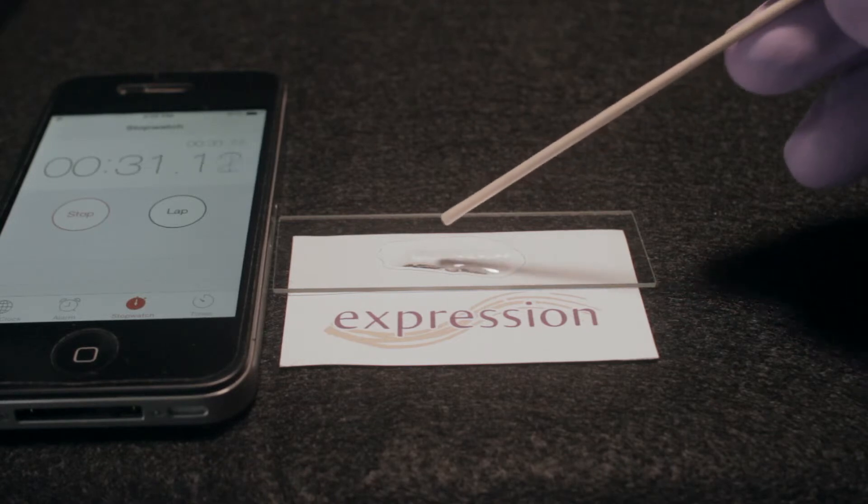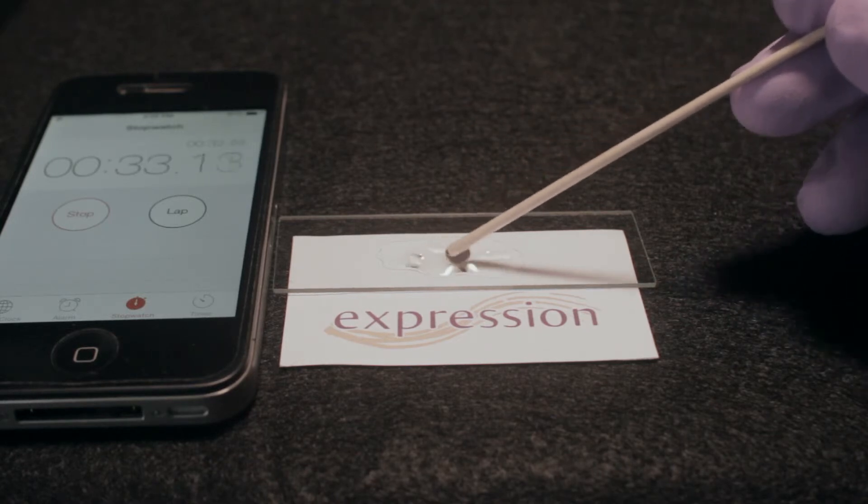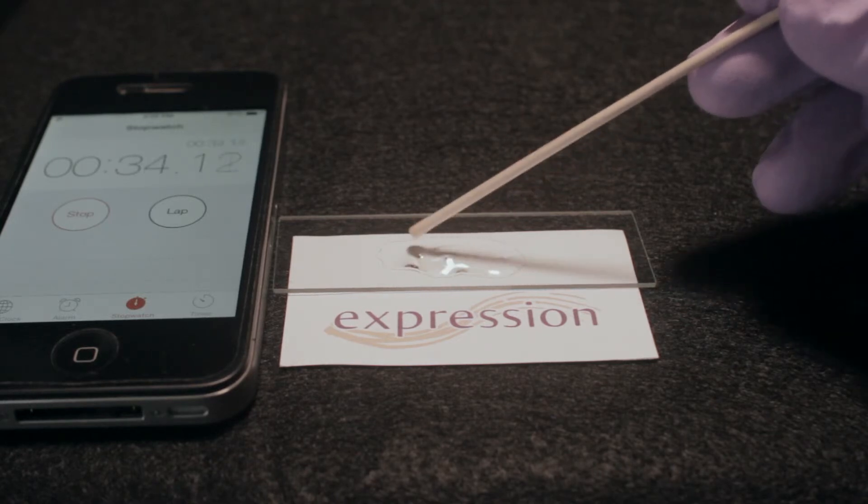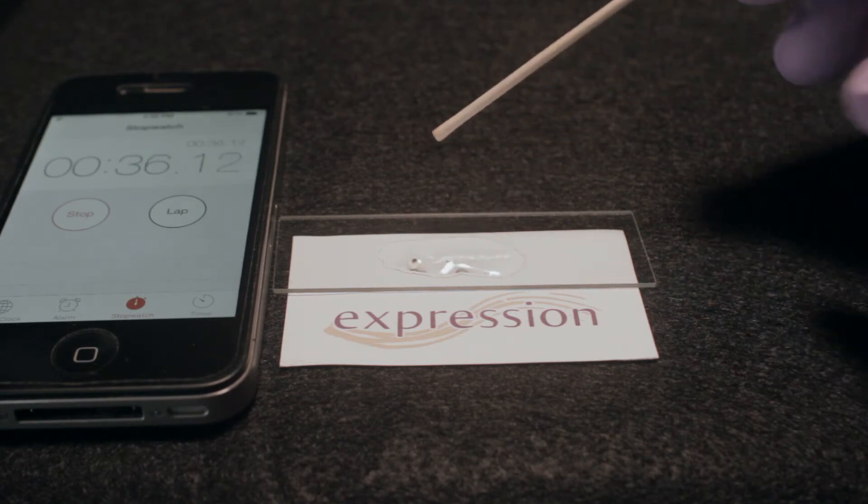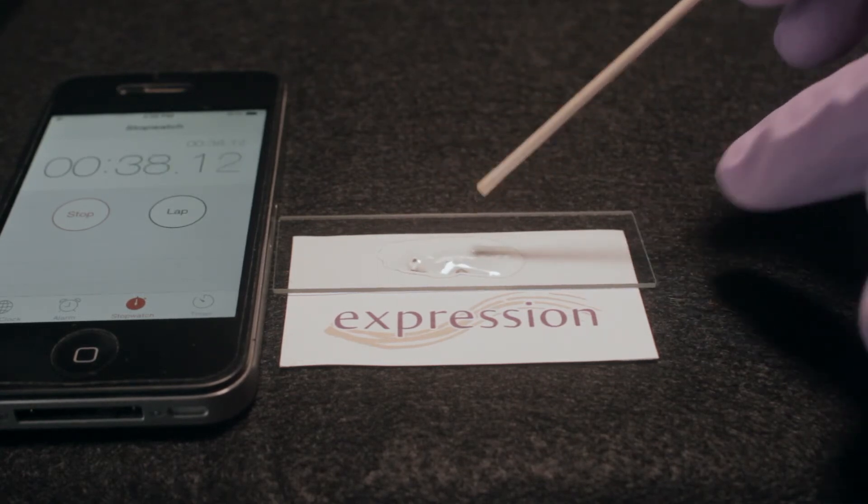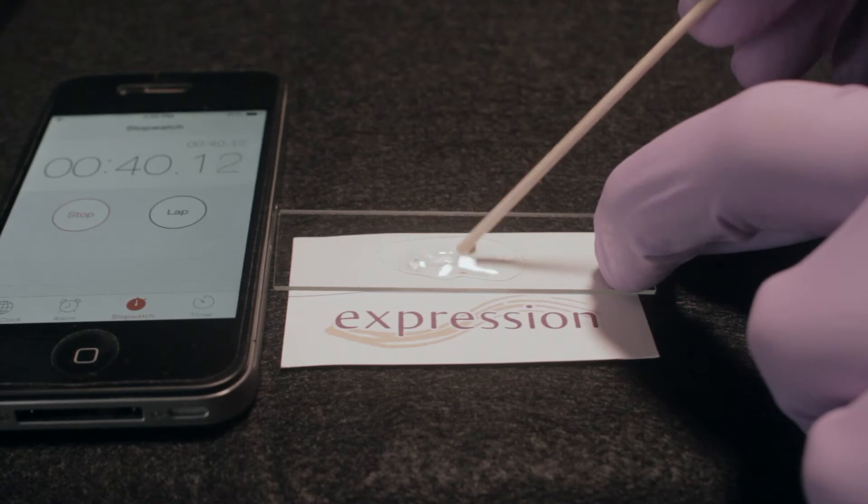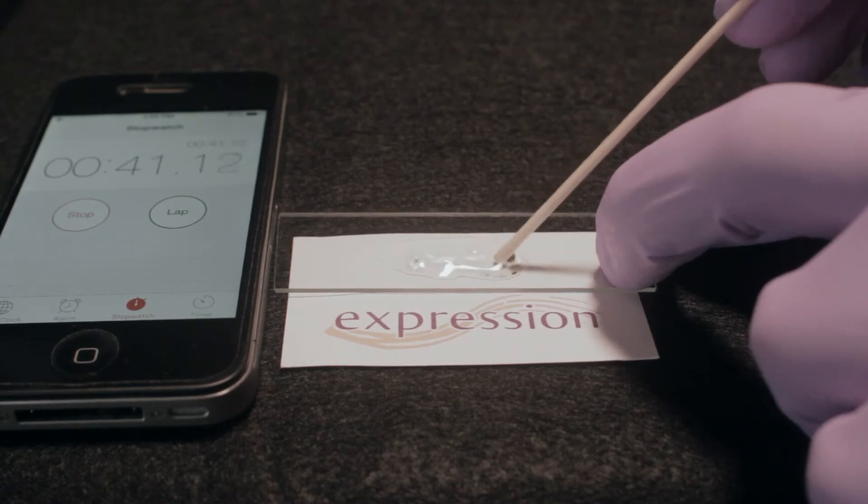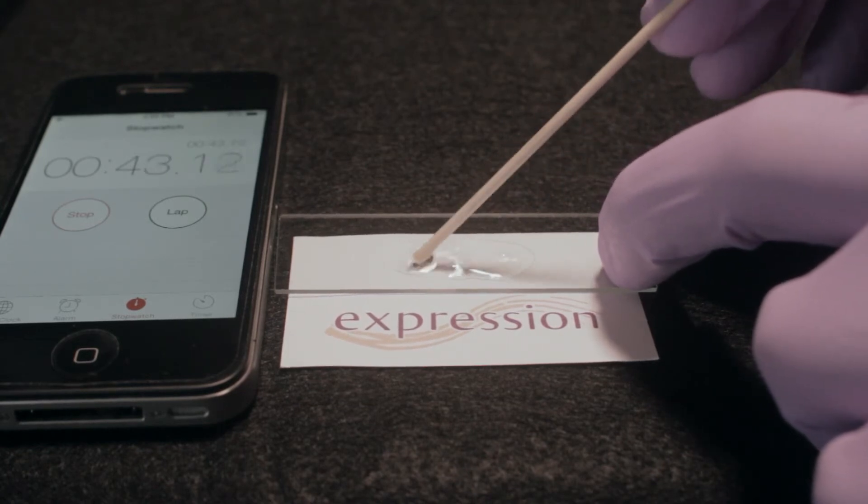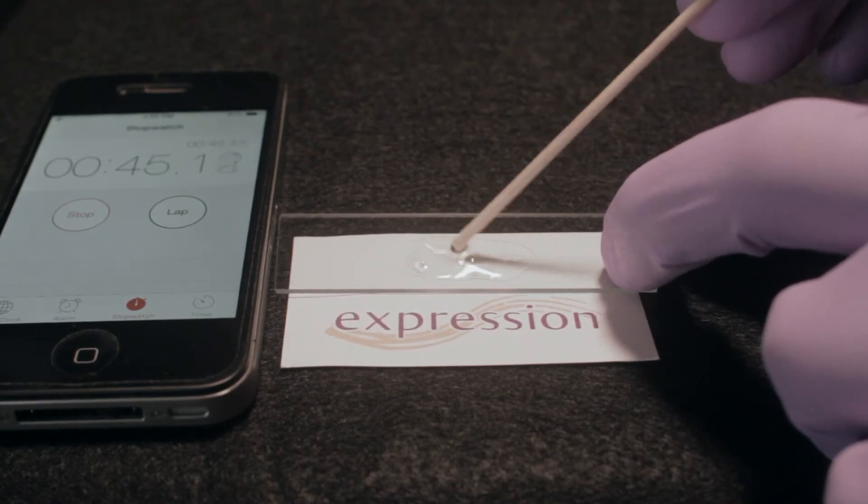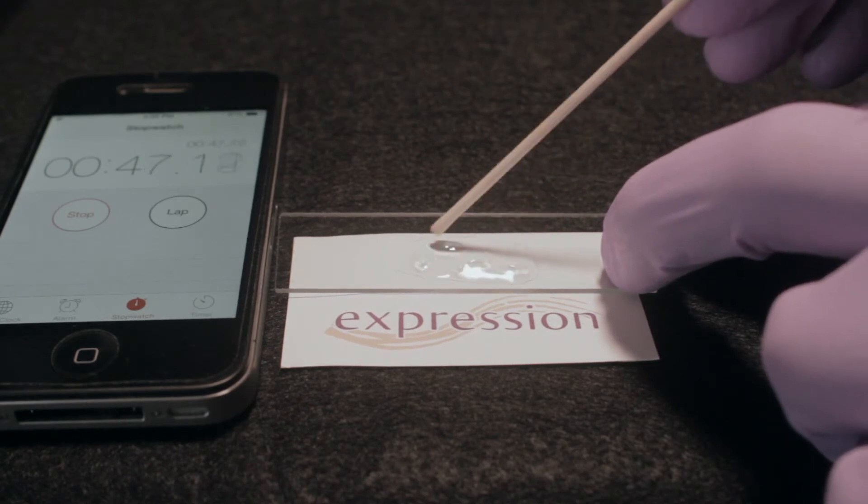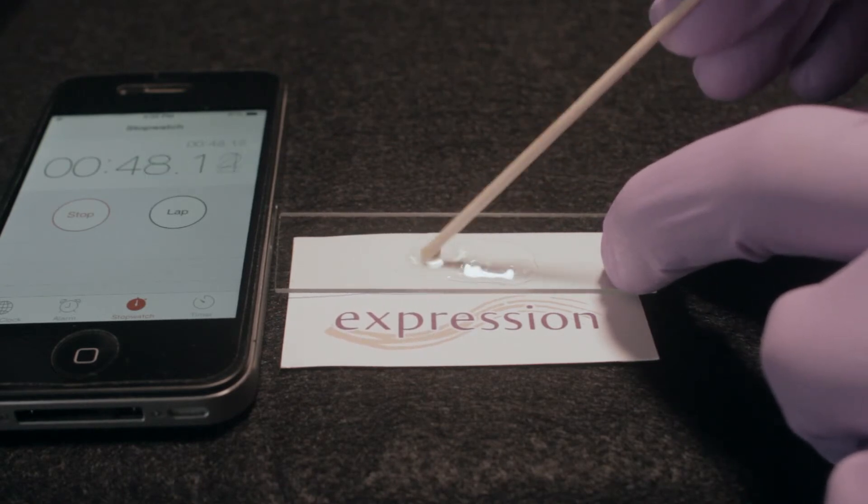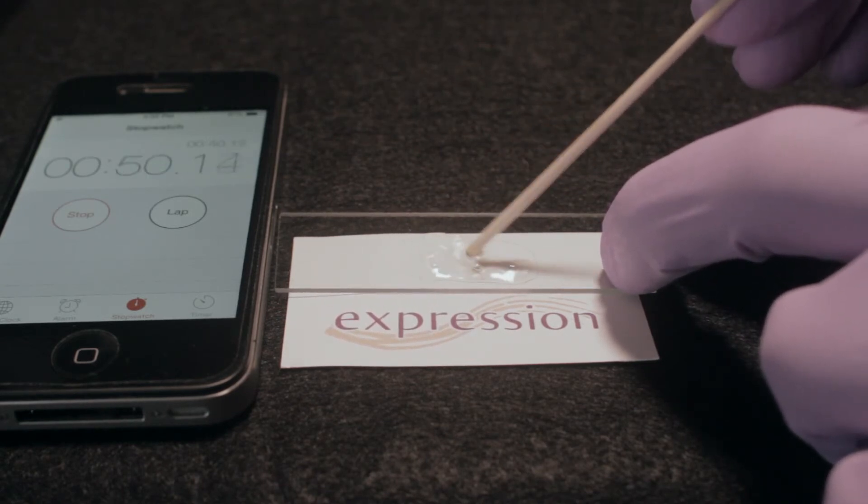I will use the end of the q-tip to stir the gel and continue the reversal. What's happening is the hyaluronidase is undoing the cross-linking characteristics of the HA gel, also known as reversing the HA. It's always good to know that the material you are using can be quickly reversed at any time if necessary or desired.